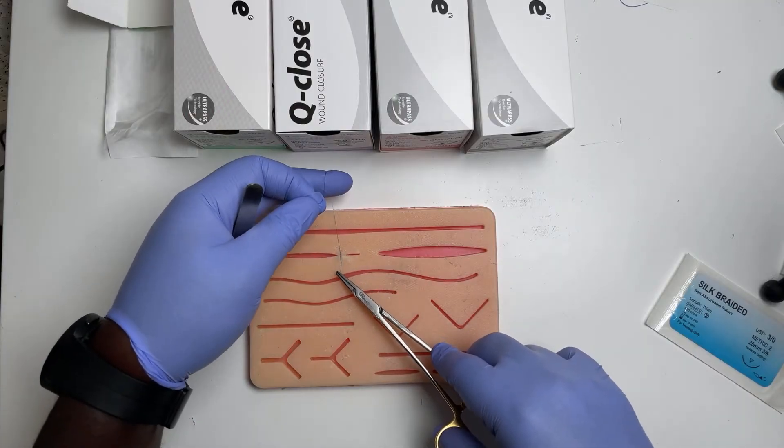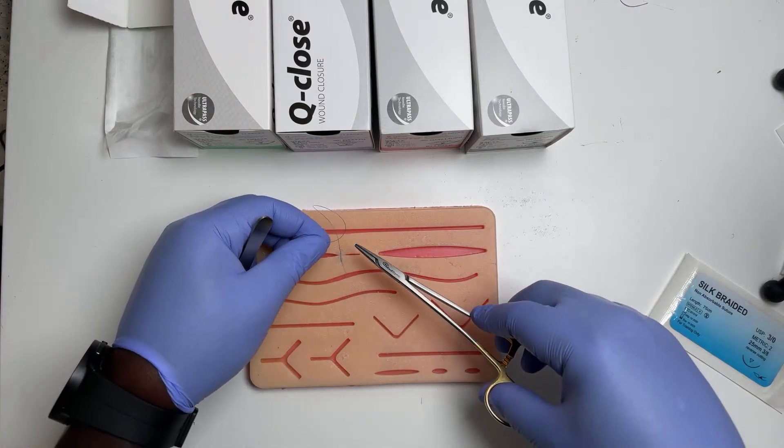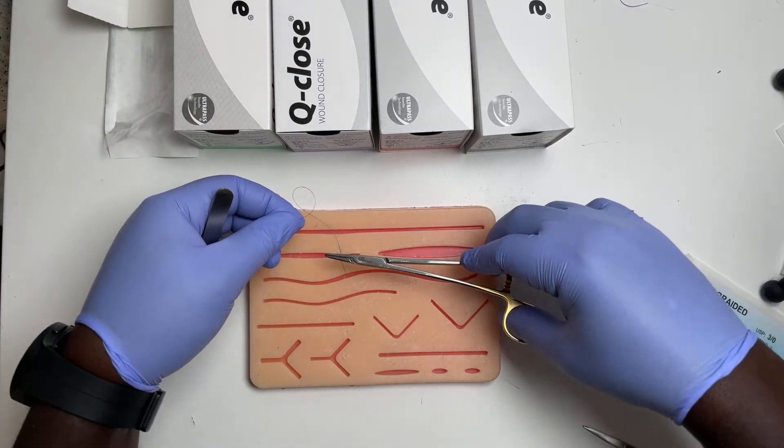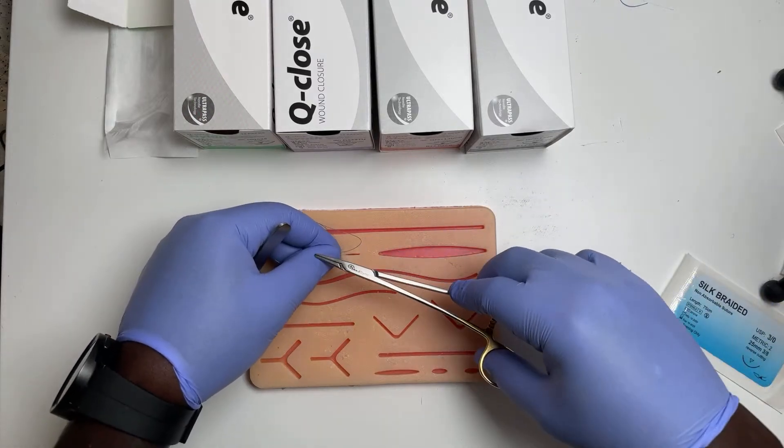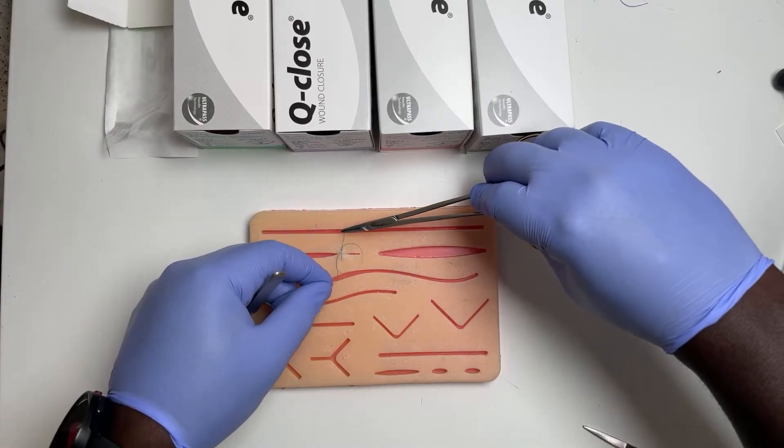Notice that my fingers just went like this. I didn't move my whole body, so it's just like this. You've got a loop there going between it, so rather than wrapping it, just put your hand down. It will make the loop. Grab the tip and tie.